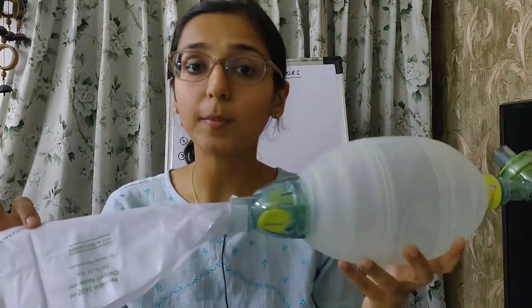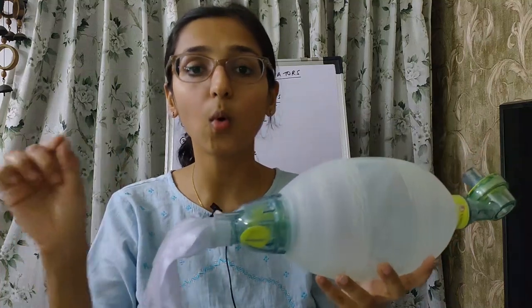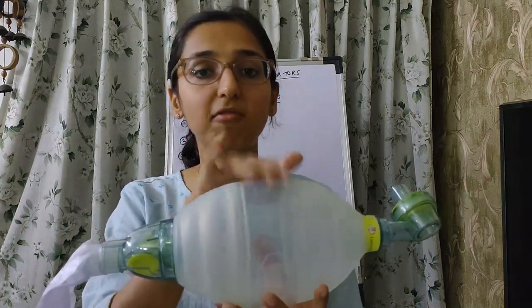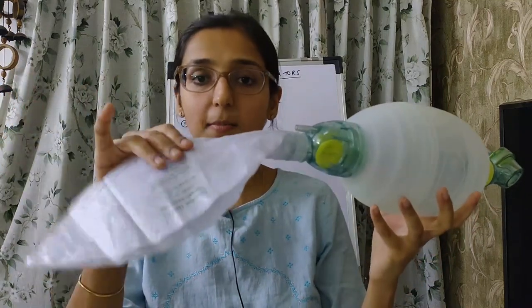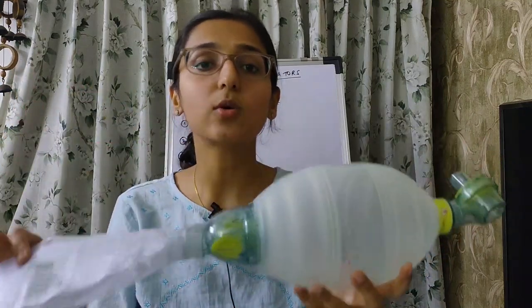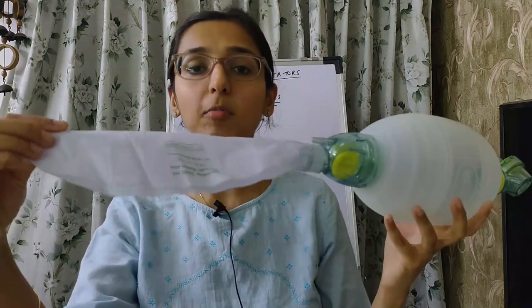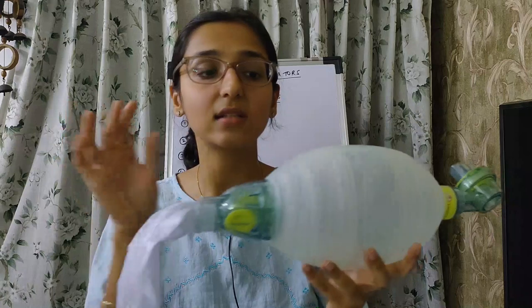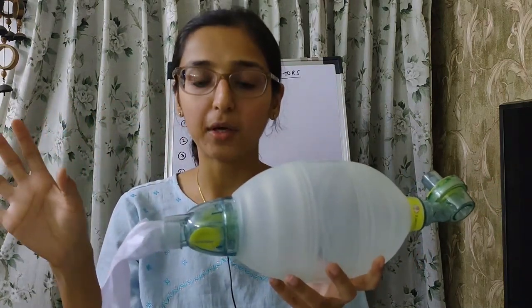This higher FiO₂ is achievable when the size of the reservoir bag is greater than the size of the self-inflating bag. If the reservoir bag volume is less than the manual resuscitator bag volume, then 100% FiO₂ cannot be achieved.